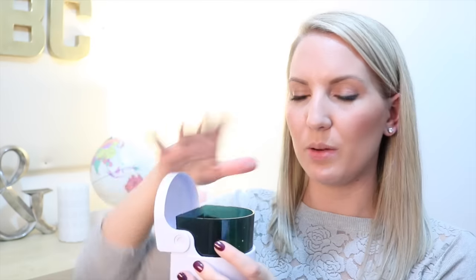A couple of you last time were asking how I clean my aligners, so I'll mention that quickly. This is something I've been doing recently since my last dentist visit — my dentist Andy gave me this aligner cleaner. You fill it with retainer bright: pop a little tablet in, fill it with water, and it has a vibration feature. You leave it in there for 15 minutes and it brightens your retainers. I use retainer bright every other day to keep them nice and clean.